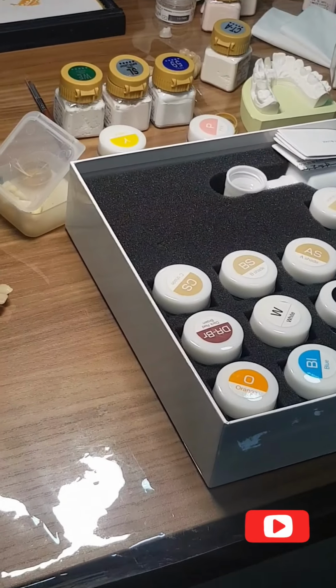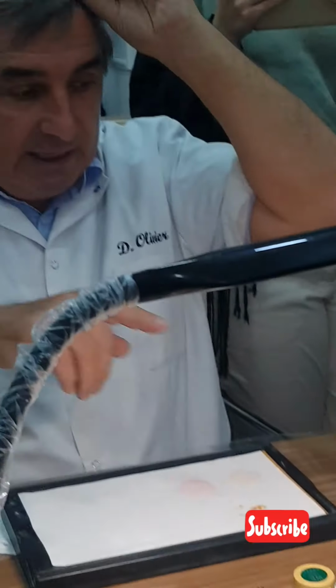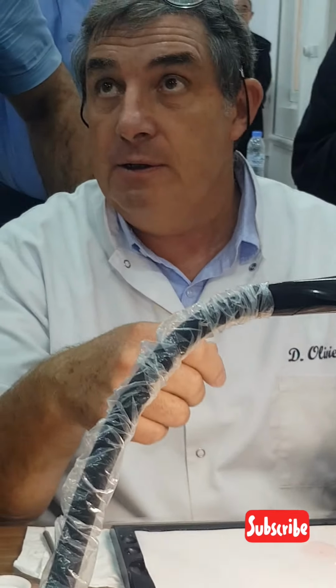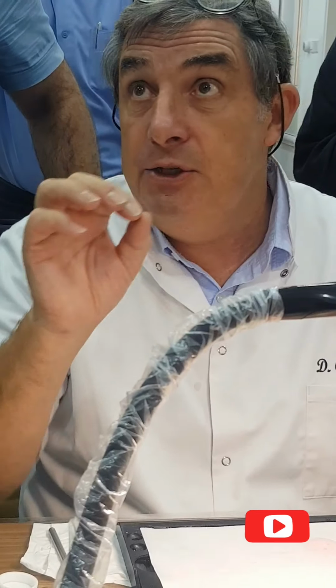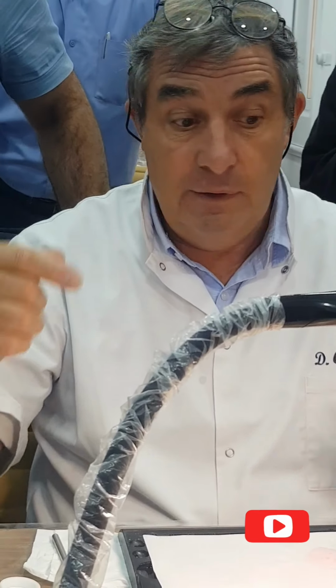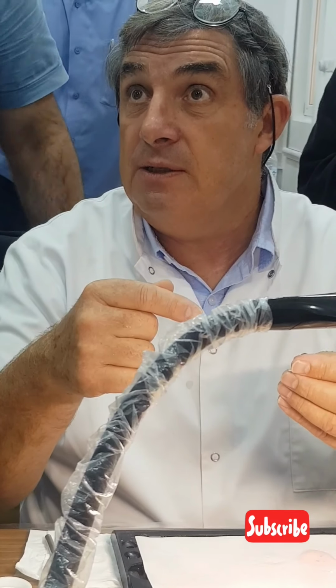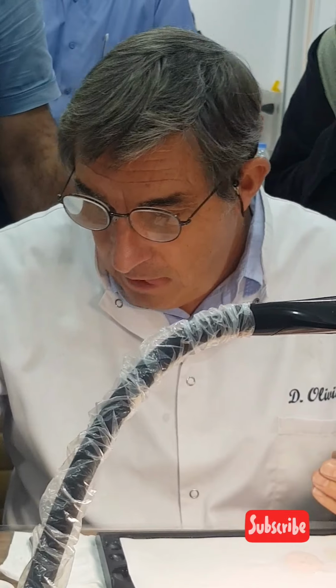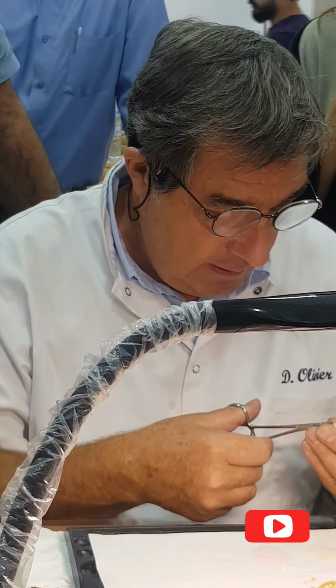That means foundation. The quality of that, if for example you mix it with your opaquer, is that the stain stays dull, with no shining effect. That's why we use it for the foundation. It's internal, beautiful. And we start.